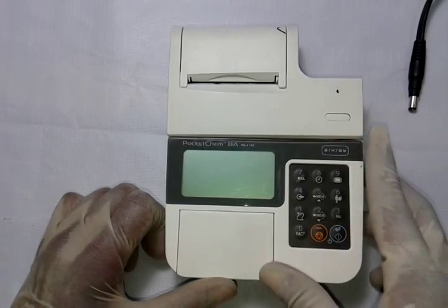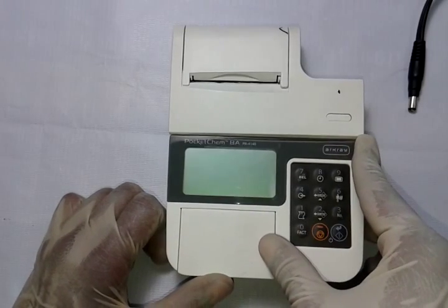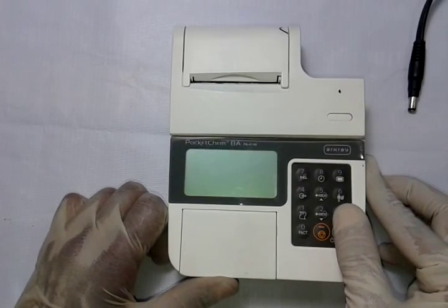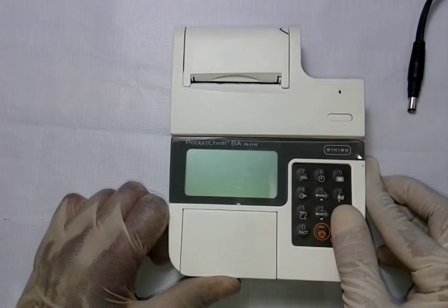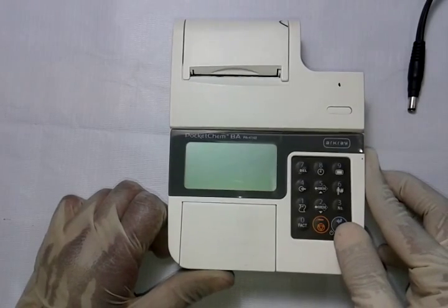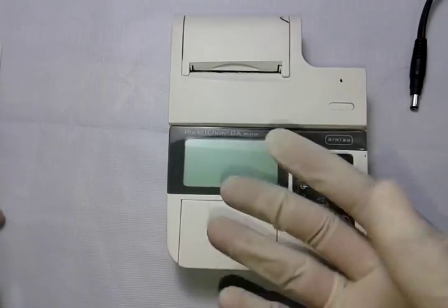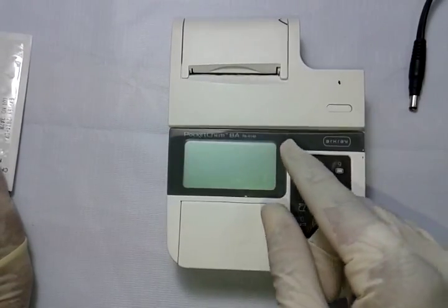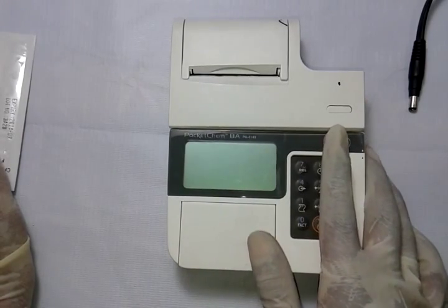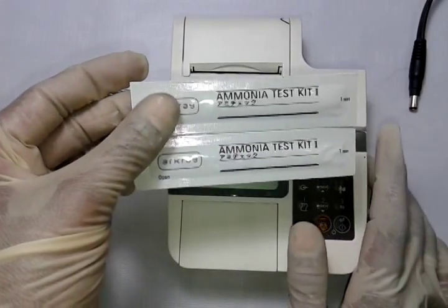The total duration for getting blood ammonia results is three minutes and 20 seconds. A key problem with blood ammonia is that once you take the sample, you must perform the test very quickly, otherwise the values go high and outside the acceptable range. Routine biochemistry also has the problem that once test reagent strips are opened, they must be consumed within a short duration or they get spoiled.